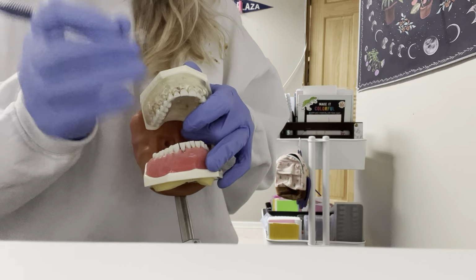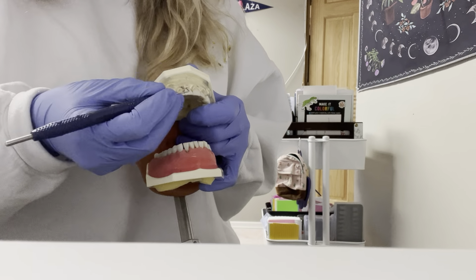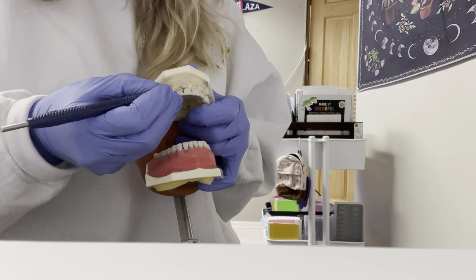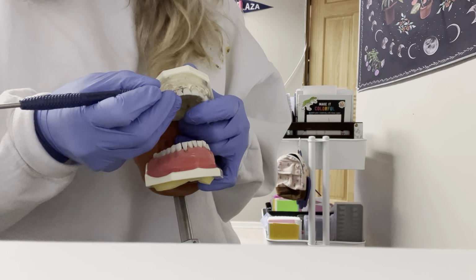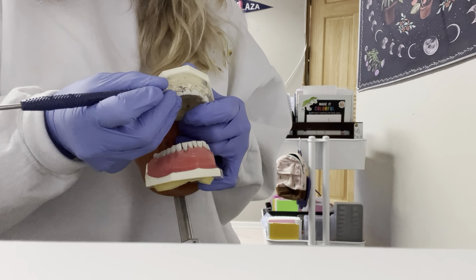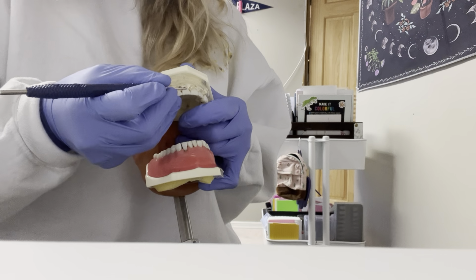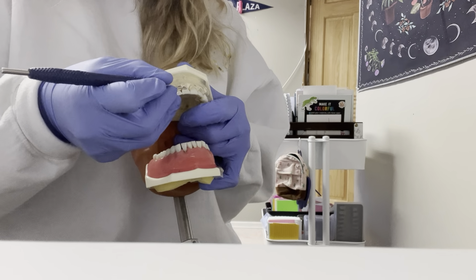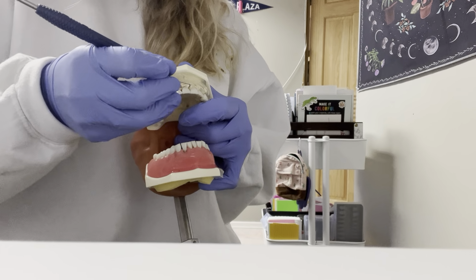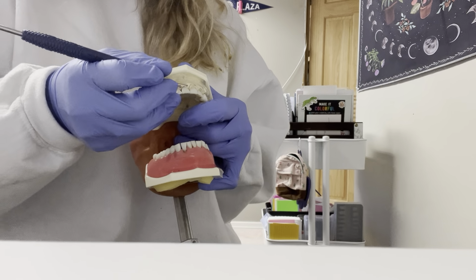So I'm going to do hypothetical numbers for tooth number 8. Say I got a whole bunch of 1s and then the highest was a 2 for the distal. Then going back, for the facial, I got a whole bunch of 2s, and all of a sudden it drops to a 3. I would say the facial's a 3. And then for the mesial, I got a whole bunch of 1s, then again a 2, so I would give it a 2. So it would be 2, 3, 2.